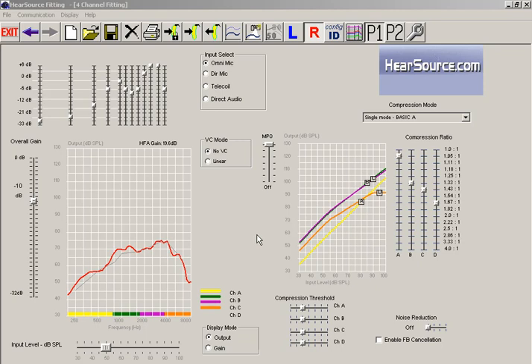This is the software that we use to program our hearing aids and in this tutorial we're going to focus in on this input selection box. Now the input selection for hearing aids refers to how we're going to take the sound and bring it into the hearing aid so that you can hear. We've got four options.